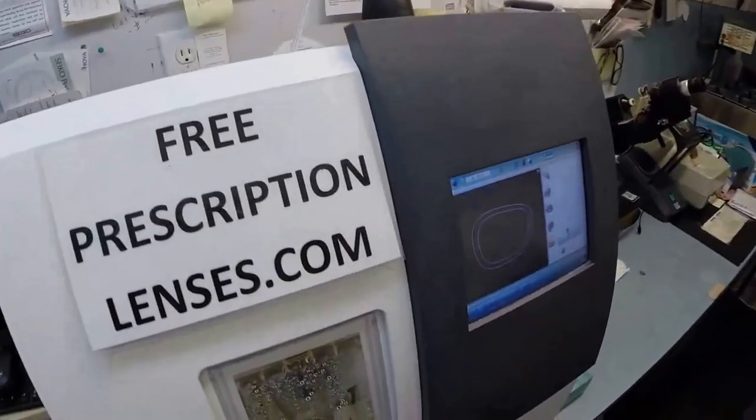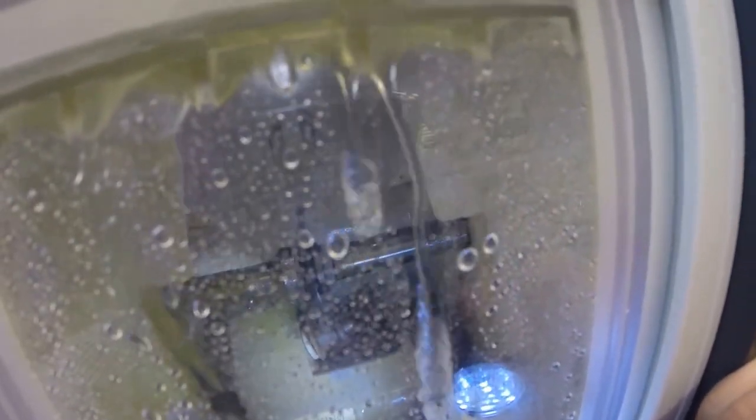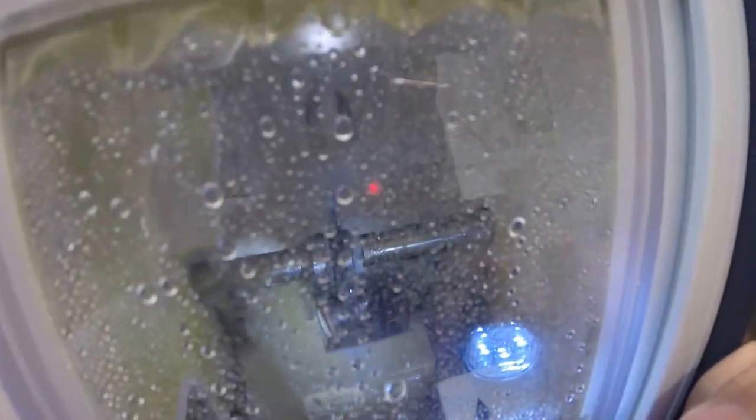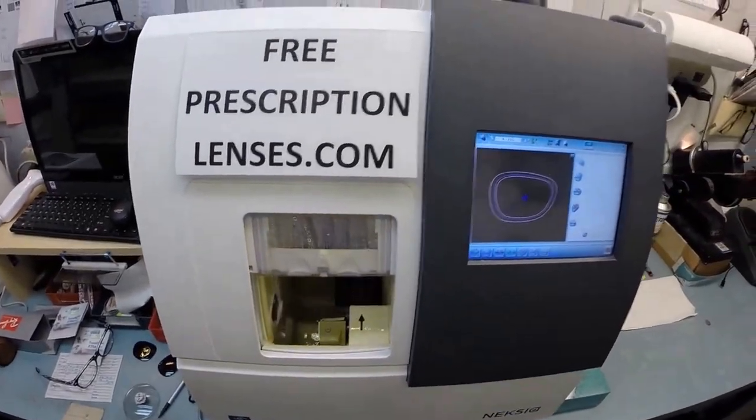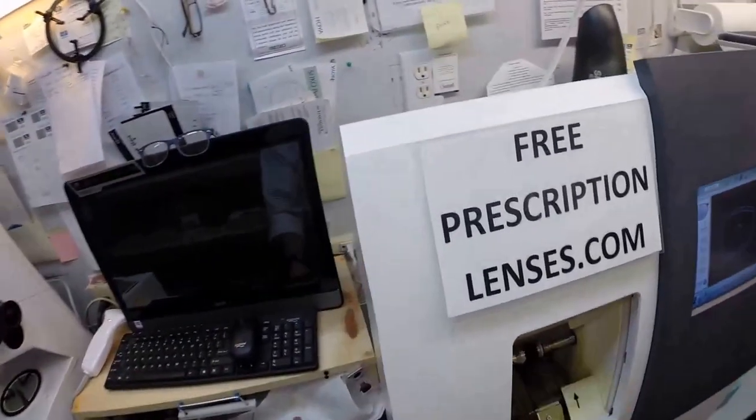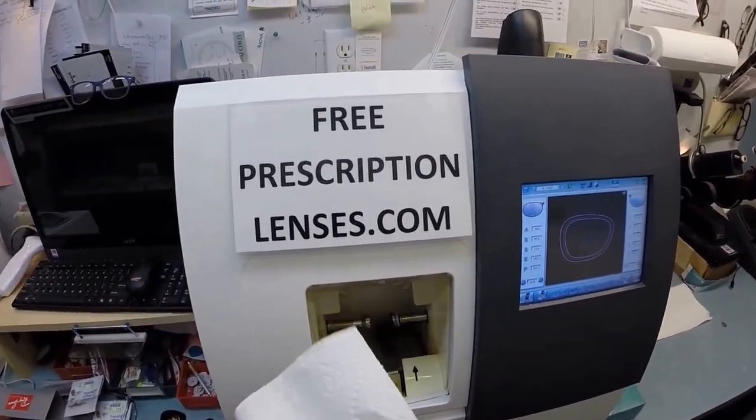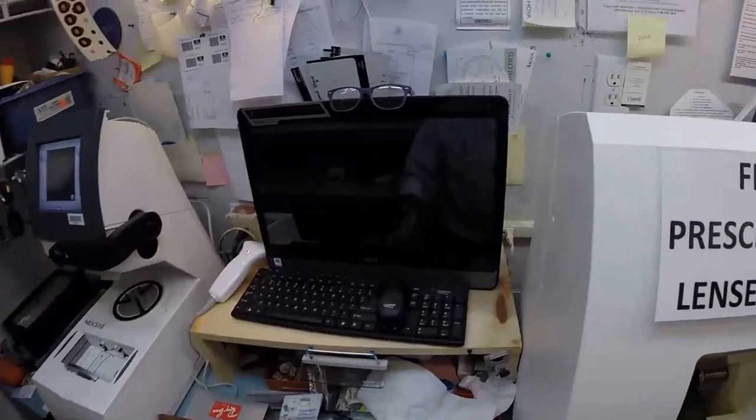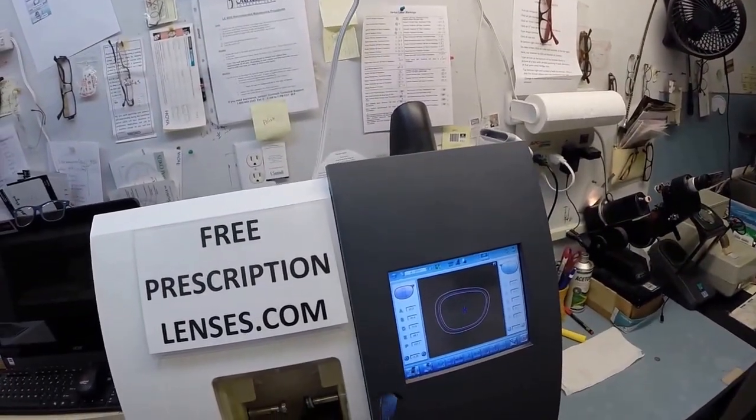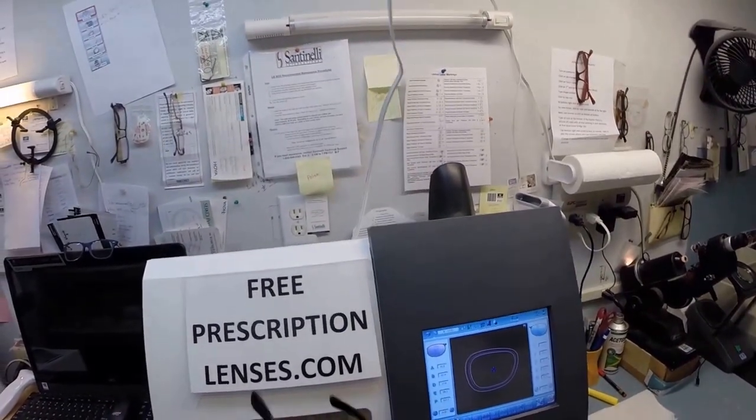Again, that little arm is moved into place - the spinning wheel that's applying the safety bevel to the rear surface of the lens. As soon as it's done I will take the lens out and we'll see if it fits. If not I'll take it down a little bit more. The golden rule: you can always cut more off, you can never add it back on. So I apologize this takes a little longer but I am a perfectionist and I'm not going to put out any work that's subpar. I'm going to open this door with my mind. I can do other things with my mind. I can melt ice with my mind - it takes me a couple hours but I can do it. If you notice the bevel has moved the lens a little bit further back. I'm going to tuck the lens in at the outside corner, push down at the nose, it snaps in perfectly. Let me make sure that's in there good. Yes it is.